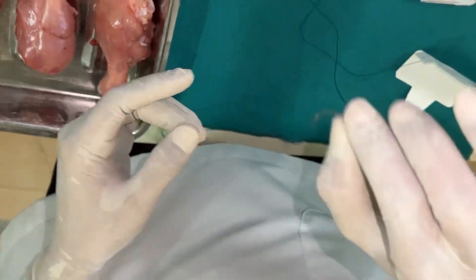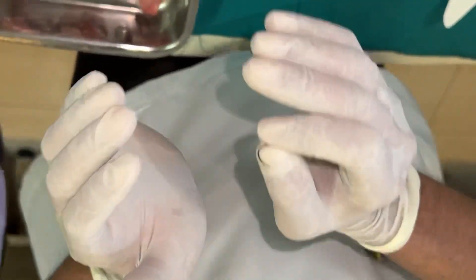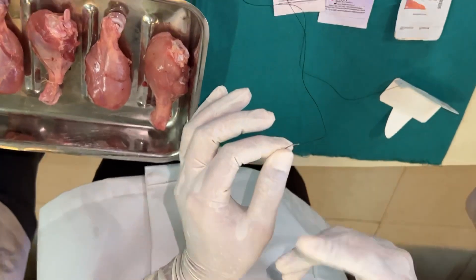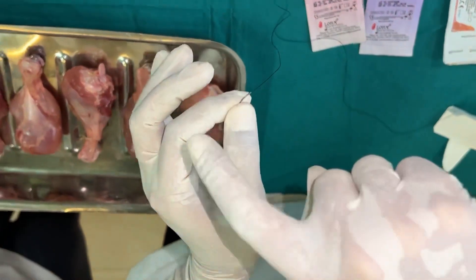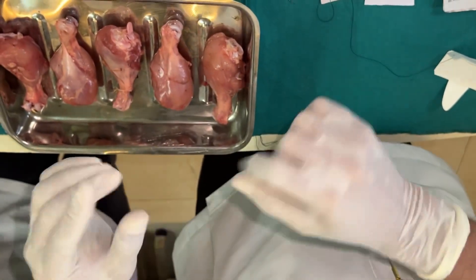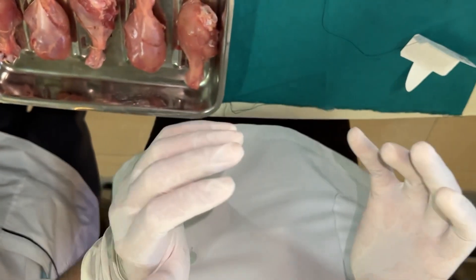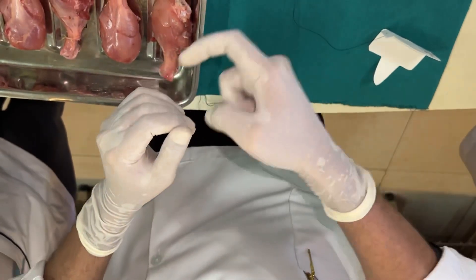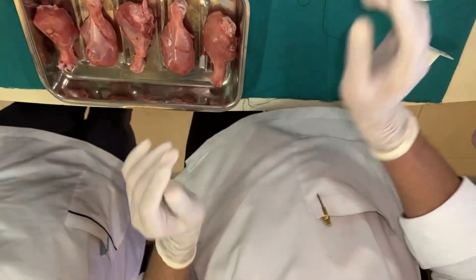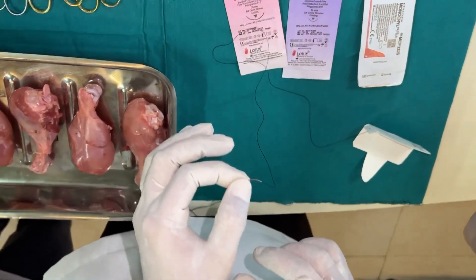This is called an atraumatic needle. When passing through tissues, the wound formed is narrower. This is different from a traumatic or eyed needle, where the suture thread passes through an eye and a knot is tied, making the rear end broad — so when passing through tissue, the wound formed is much larger, hence the term traumatic.